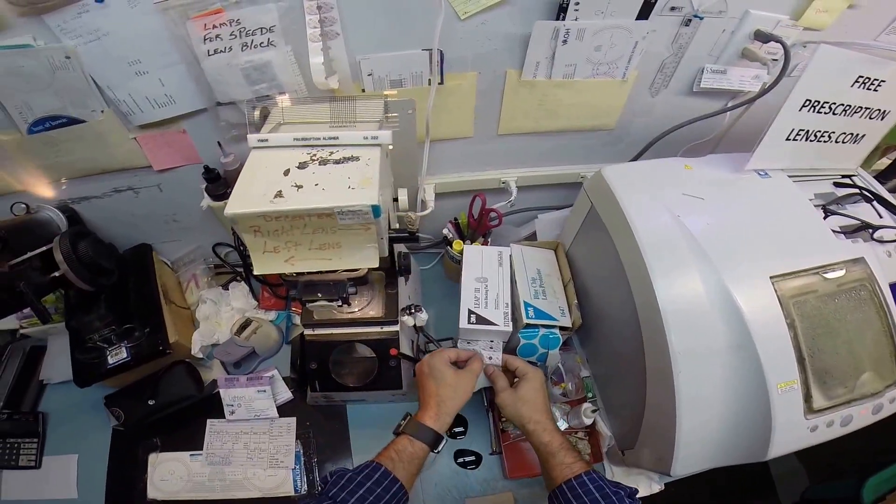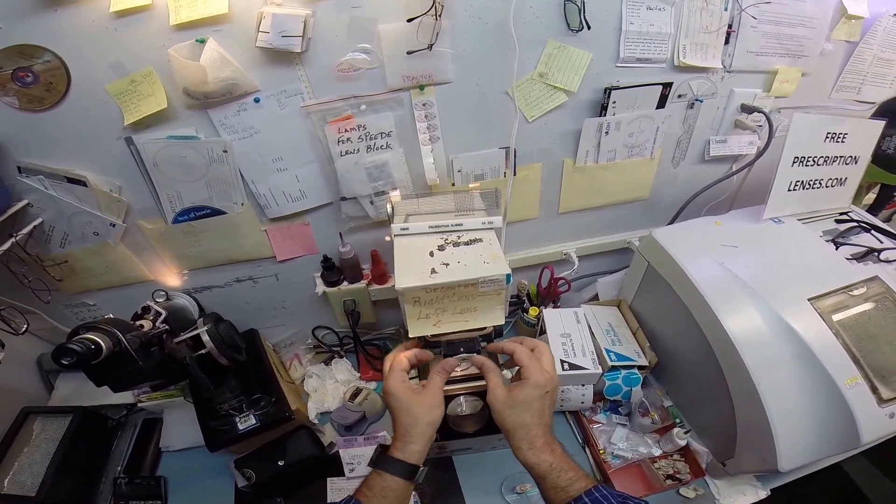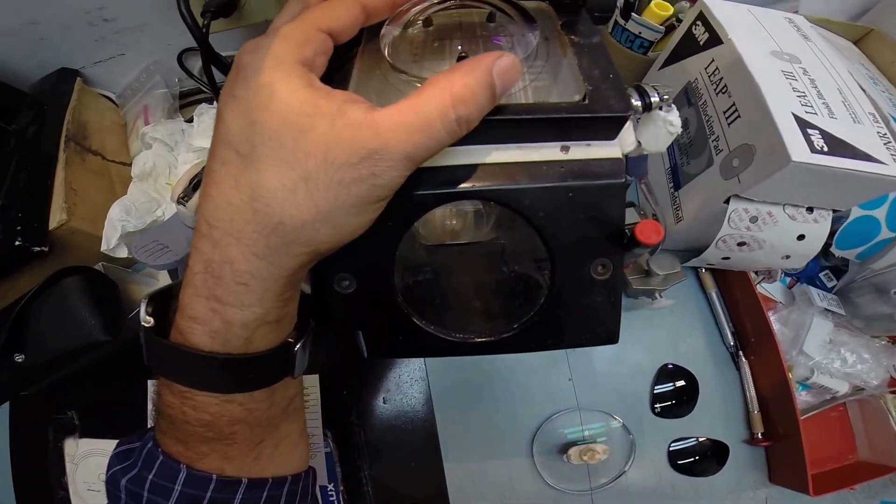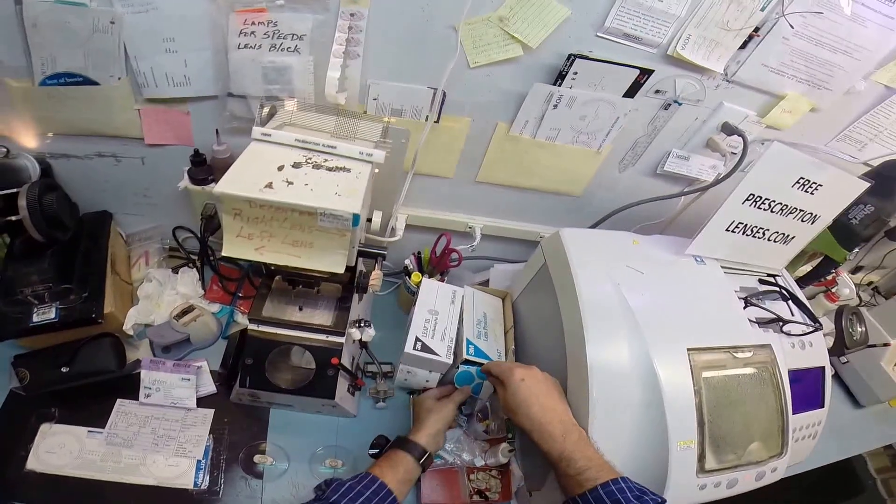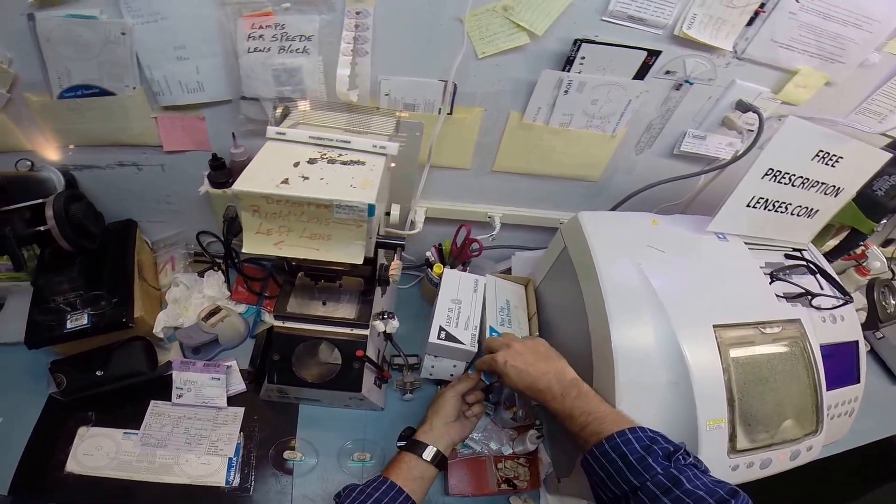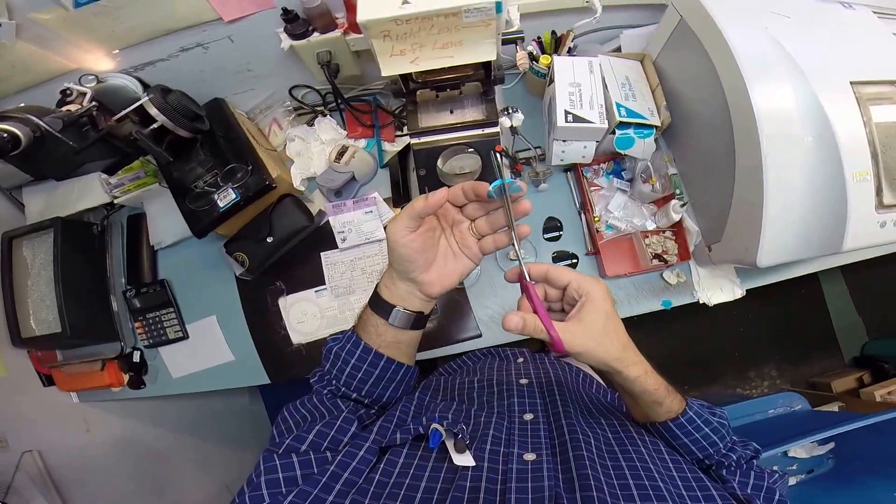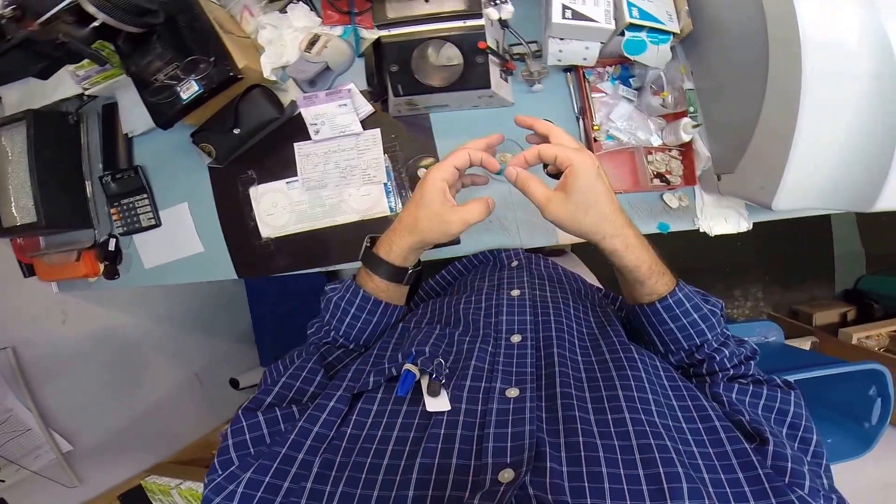I joke with you because it's been a pleasure talking to you on the phone while all these orders have been placed. This is the first of the three pairs, plus your brothers are going to get the Clubmaster. I do want to put one more adhesive sticker on the back of the lens because your anti-glare coating makes your lens a little bit slippery. So I'm going to put one more sticker on the back of each lens. I'm going to put it into the chuck and hit start.